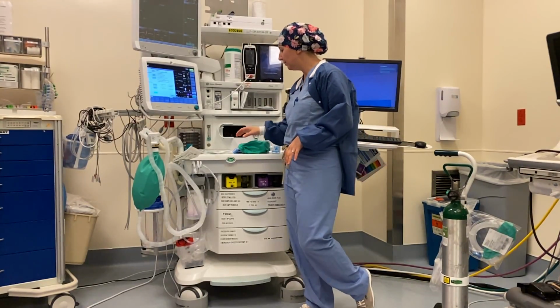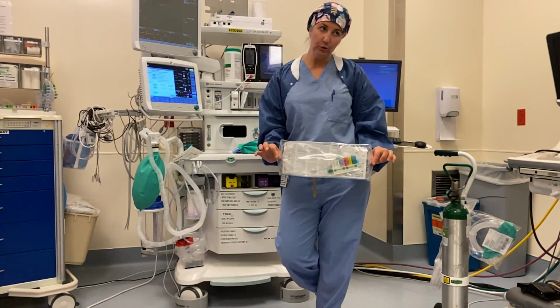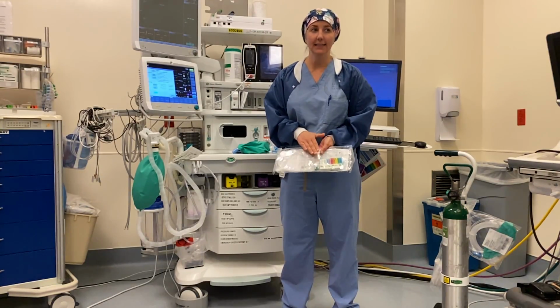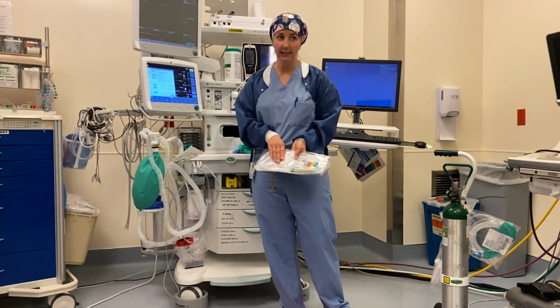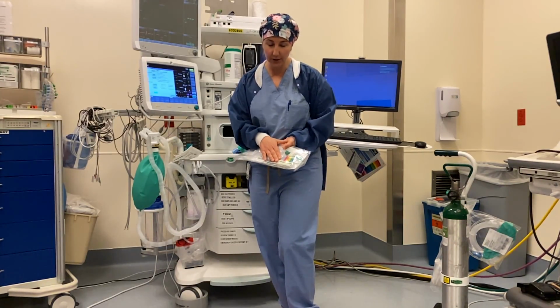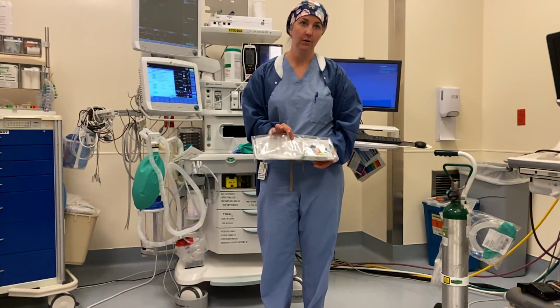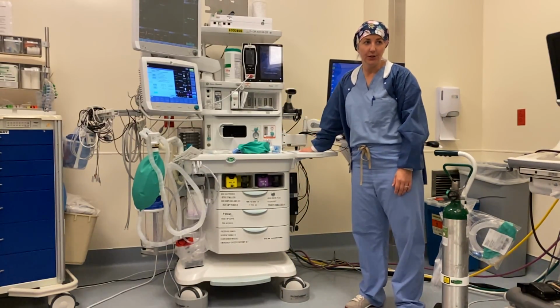The next thing I want you to do when you're thinking about yourself is to make sure that you have this inline suction. We don't usually routinely stock these inside the operating room, so you might have to call your anesthesia tech or somebody else to get you one. But every single ICU has these. So just pick up the phone and call the anesthesia tech and ask them for an inline suction system. What's really important is that once the patient's intubated, if you have this inline suction system, you can really minimize, if not eliminate, any need to break the circuit, therefore really decreasing your risk of exposure, okay?